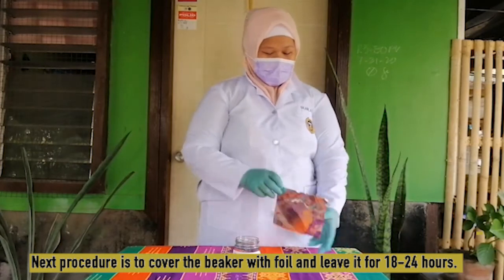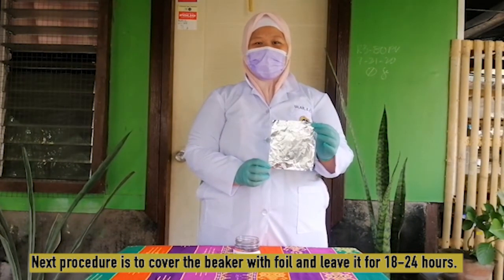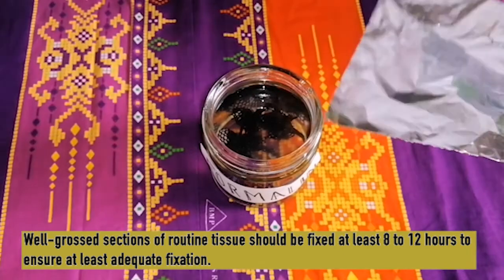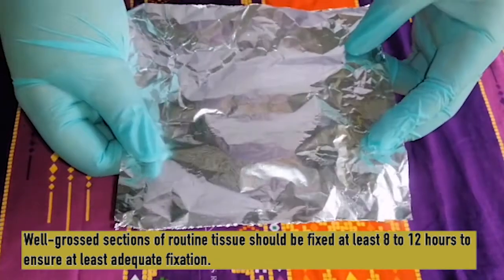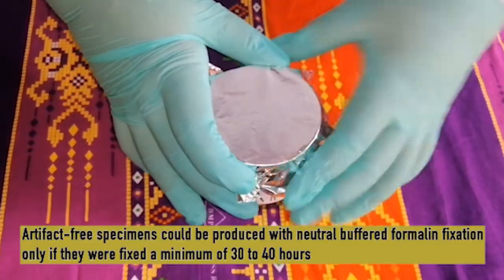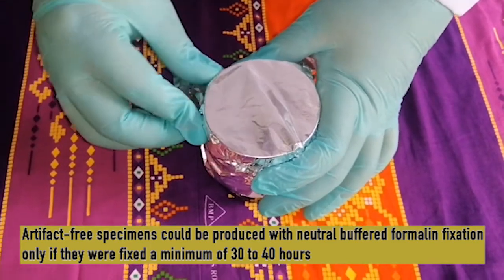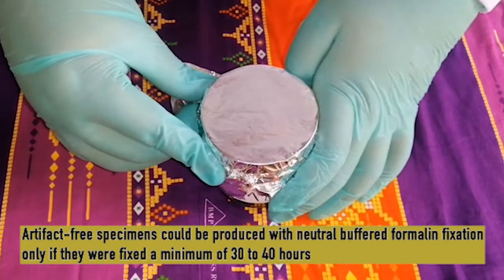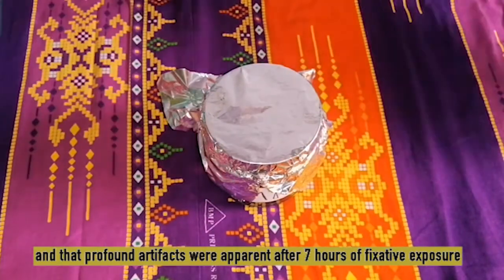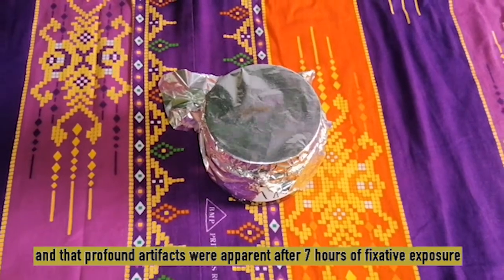The next procedure is to cover the beaker with foil and leave it for 18 to 24 hours. Gross sections of routine tissue should be fixed at least 8 to 12 hours to ensure at least adequate fixation. Artifact-free specimens could be produced with neutral buffered formalin fixation only if they were fixed a minimum of 30 to 40 hours, and profound artifacts were apparent after 7 hours of fixative exposure.